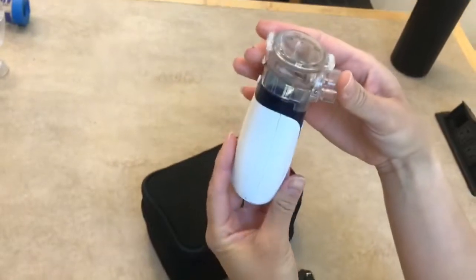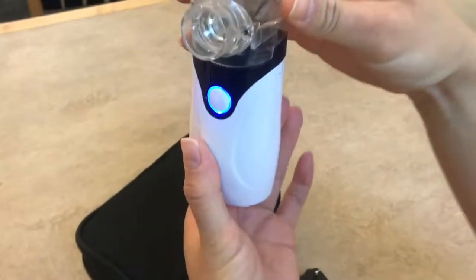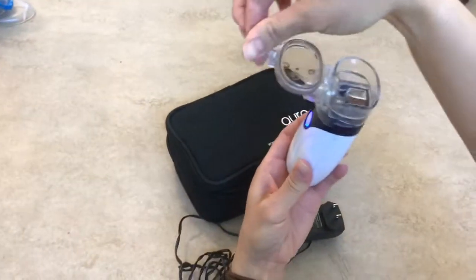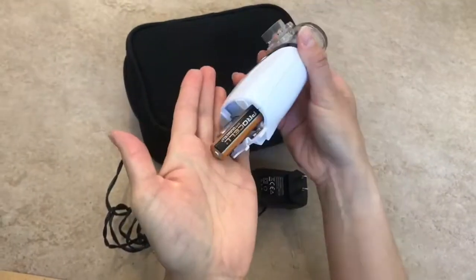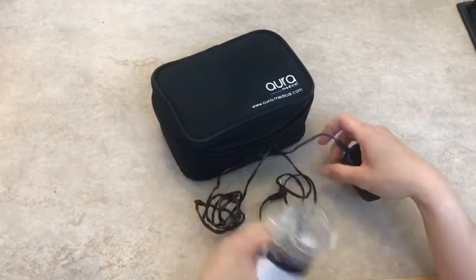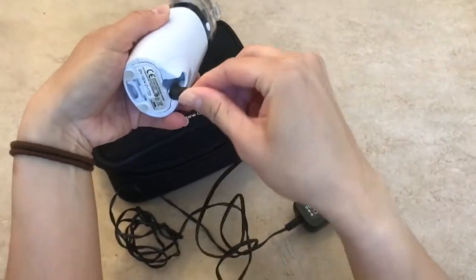And then the little nebulizer itself is very small — you can even put it in your purse. You turn it on and that little blue light comes on. The top portion is where you put your nebulizer treatment, and the bottom pops up so the batteries insert there. It's quite easy to use.